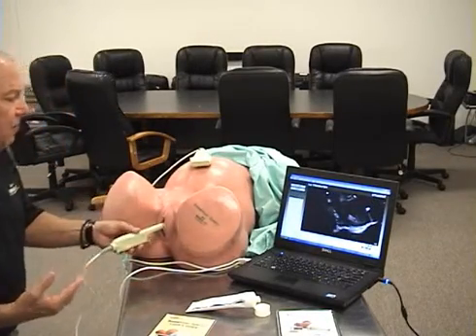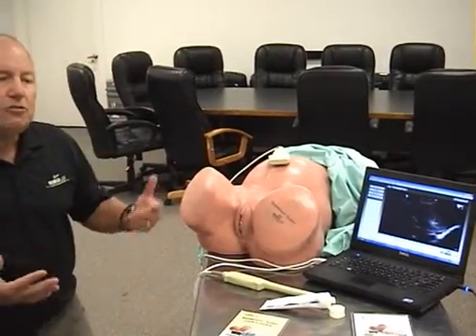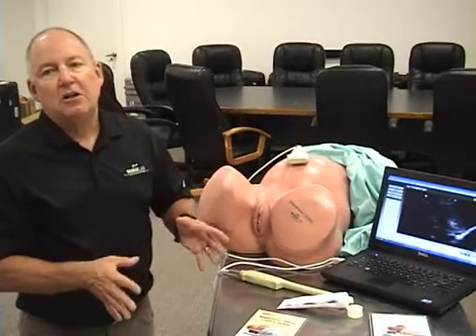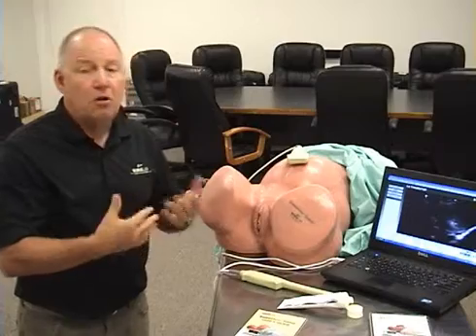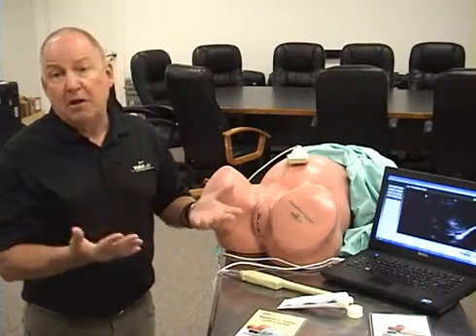So using this system, you can teach your students how to read diagnostic ultrasound, and then you have the opportunity to test them with this system to determine whether they see an ectopic pregnancy or they just see a normal pregnancy or no pregnancy at all.